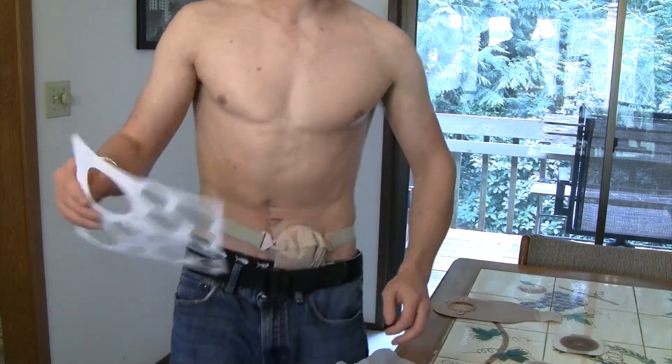But what it turned out was that by cutting my wafer so small, the bottom edge of the wafer was actually sawing back and forth at the base of my stoma when I bent down or leaned over during daily activities. I didn't realize it because I never looked at the bottom of my stoma. If you cut through the bottom of your stoma, it will leak out there, reach the wafer-skin junction, and cause all kinds of leaking problems.